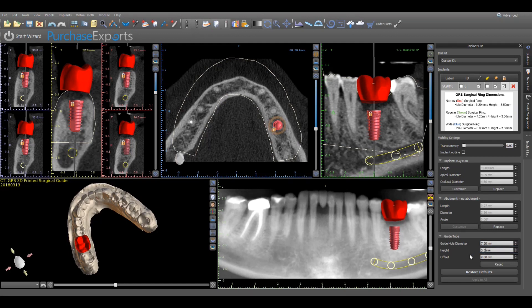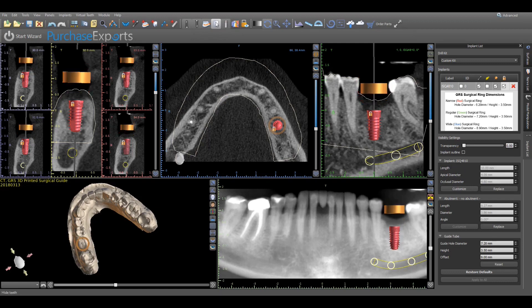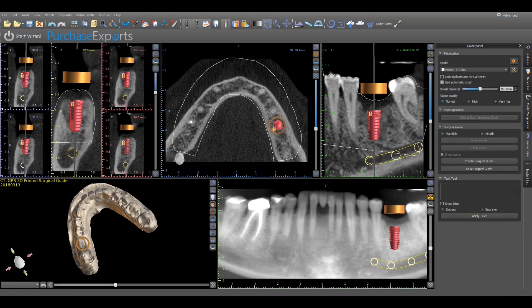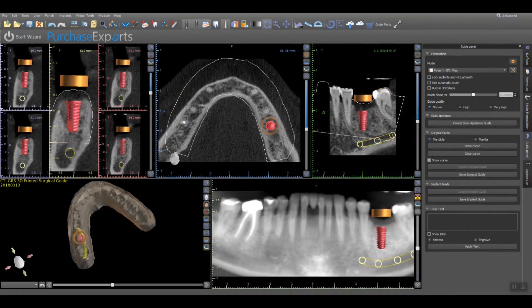Once the adjustments have been made, proceed to the top of the implant list panel and under implants confirm that the drill guide visibility checkbox has been checked. Once completed, go to the top of the screen and click on the virtual tooth icon to hide any teeth that may have been added during the implant planning process. Finally, move to the left and under the panels menu click on the guide fabrication subheading, which will automatically open and create a tab in the open panels menu to begin the guide fabrication process.